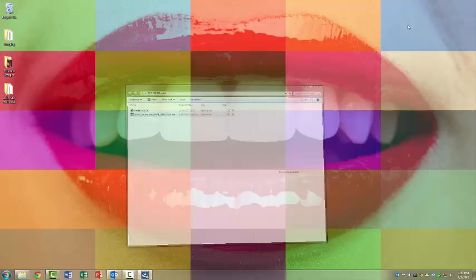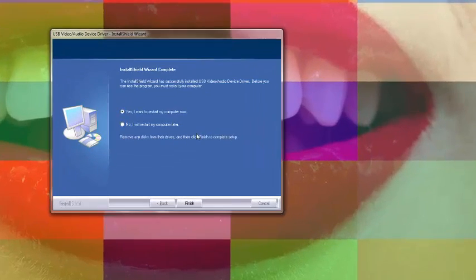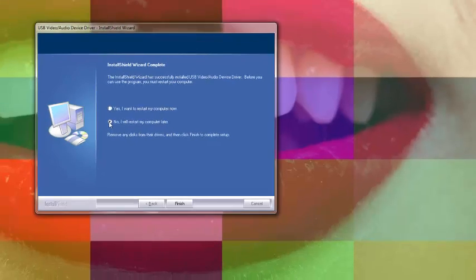So the wizard for installing the driver is complete, and you're going to say Finish. And now it's time to reboot the machine or restart the machine.